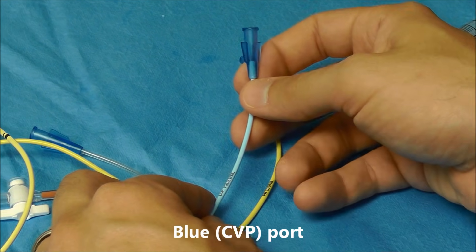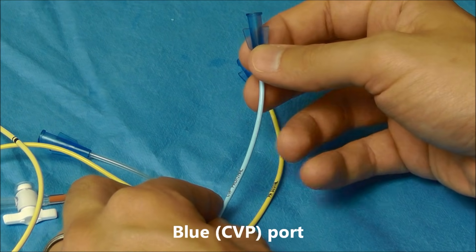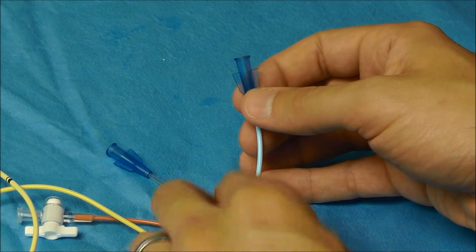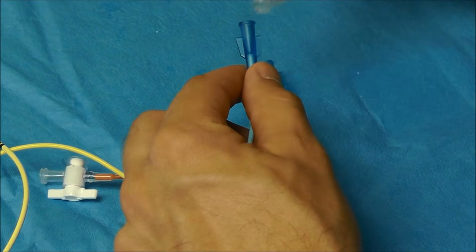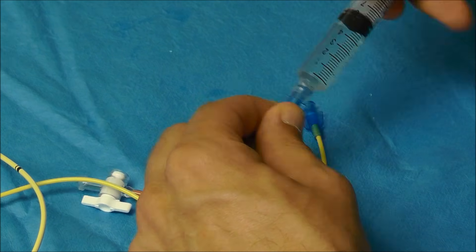Now let's go to this blue port here. The lumen to this blue port is much more proximal than the distal lumen. So I can demonstrate this by connecting saline here.